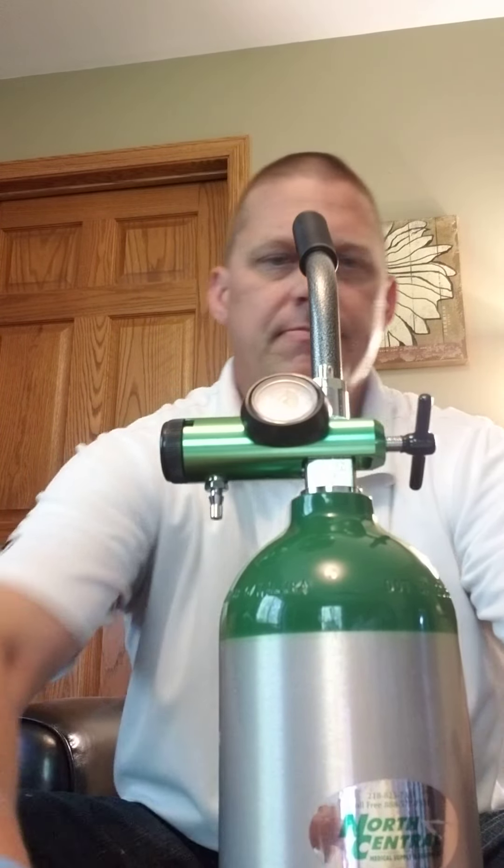The regulator goes right over the top and then just slides right in — those two prongs into those two holes. You've got a nice little knob here where you're just going to tighten it down. You're just going to hand tighten it, and voila, it's on.